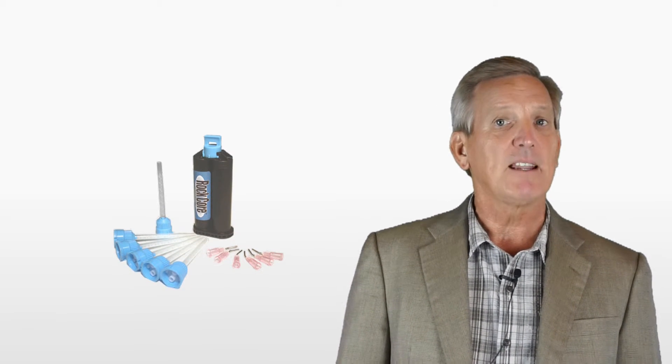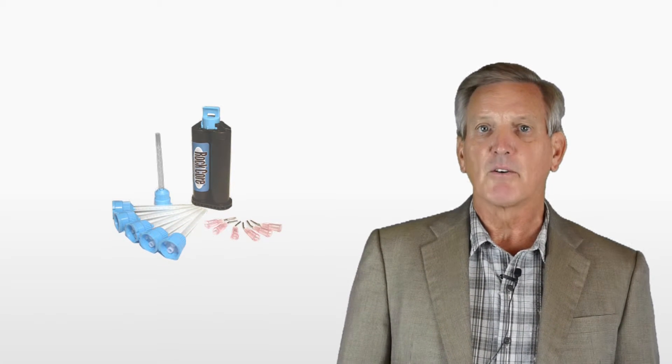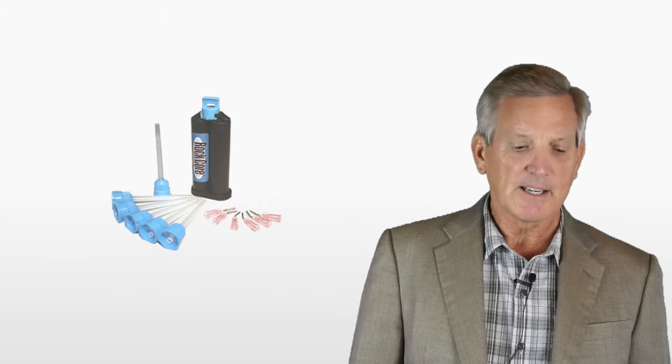Rockcore has become our mainstay product for post and core rehabilitation. The nice thing about Rockcore is that we can preload it in a syringe. That makes it very user-friendly for our ergonomically challenged smaller hands. It's a big difference when you can have a syringe that's smaller that will give you the appropriate amount of material dispensed without great ergonomic challenge.